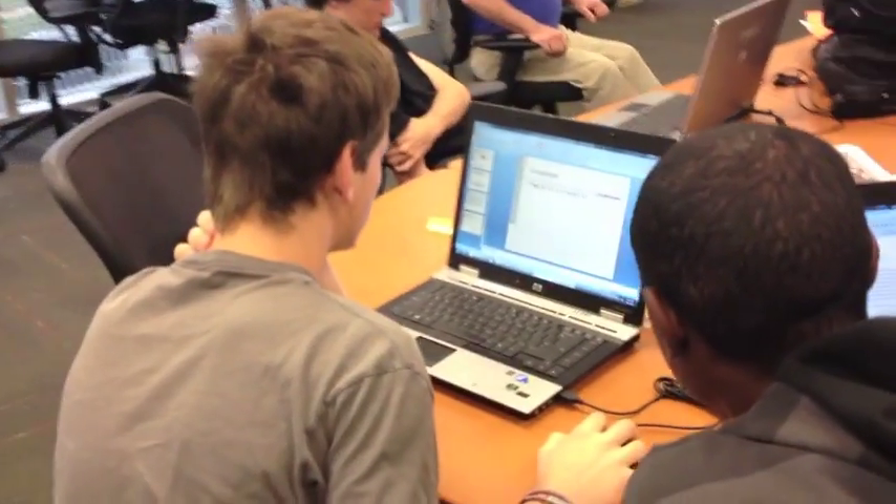We decided to build a robotic arm that not only assists with pressing elevator door buttons, but can reach high places and pick up fallen objects as well. This robotic arm will contribute greatly to the disabled in wheelchairs in numerous ways.